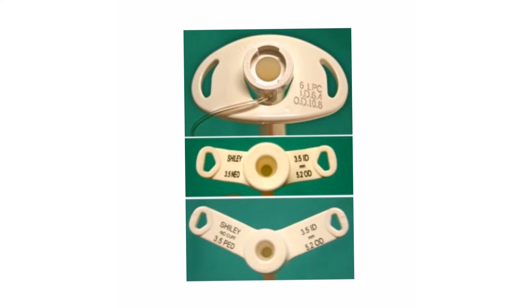This is also what we call the flange. This is where you see the tracheostomy tube. This is the outer part that we see, and then the cannula, the tube is going like this. This is the flange that attaches the tube to the skin of the neck and doesn't allow the tube to be lost in the tracheostomy.